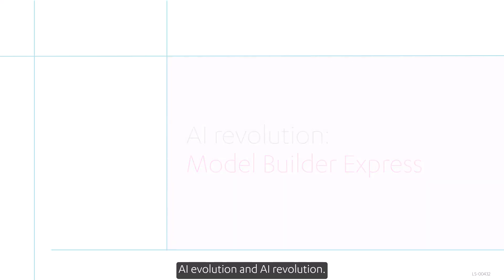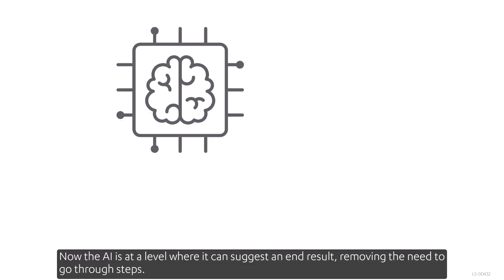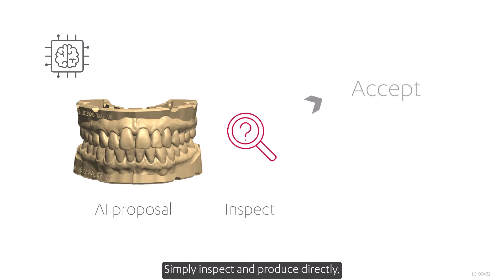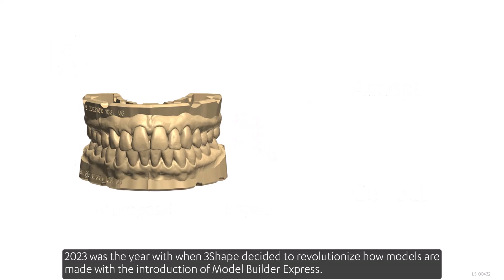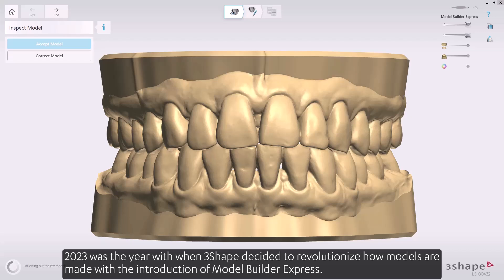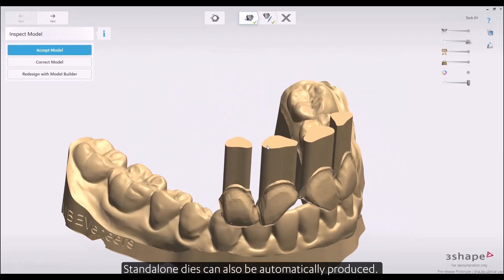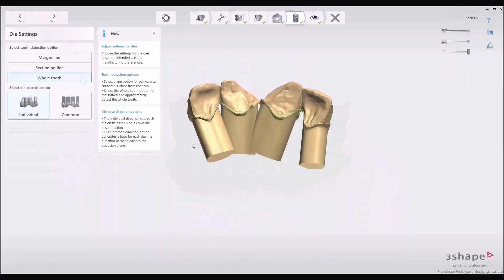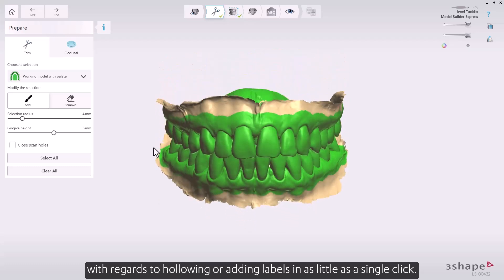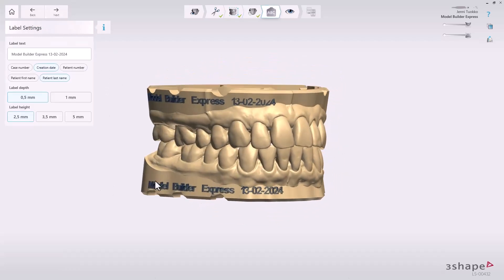AI has evolved from helping with steps and trivial tasks to suggesting an end result — removing the need to go through every step. You can simply inspect and produce directly, or choose to adjust to your preferences. In 2023, 3Shape revolutionized how models are made with the introduction of Model Builder Express: using AI, it quickly and automatically generates unsectioned models according to your preferences, and standalone dies can also be automatically produced. You still have full control with personal adjustments for hollowing or adding labels, and you can save your preferences for even faster future workflows.